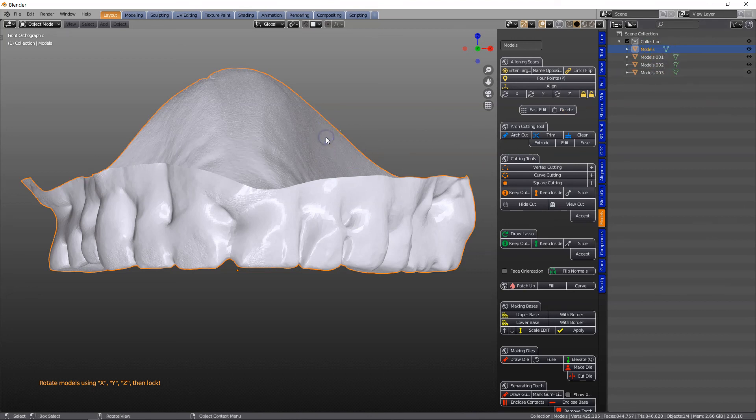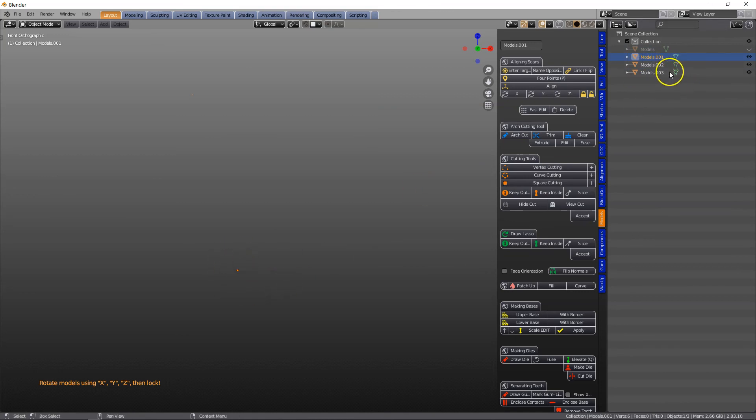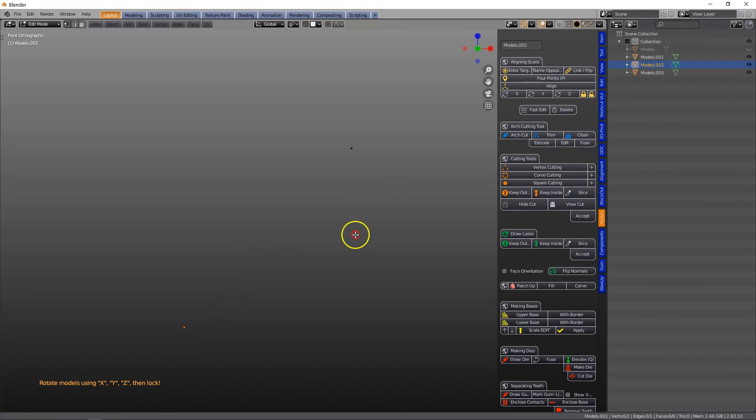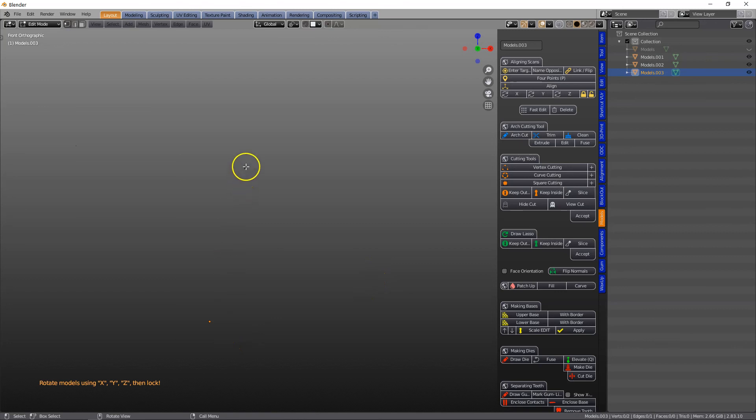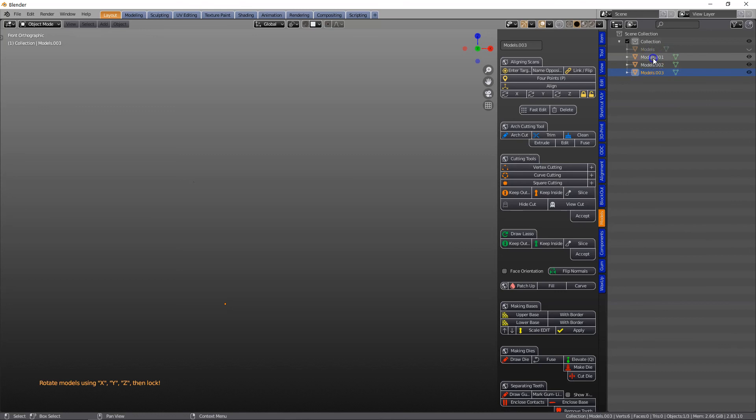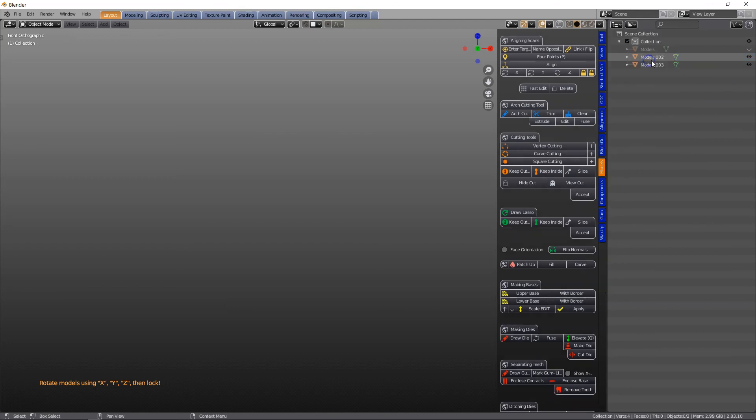So if I hide the scan, we've got a few vertices around the show. So in Edit Mode you can see here's a little piece, and then we've got another little piece somewhere else. There we've got another piece. So it's always important to make sure that you don't include these pieces, these vertices, inside of your model. So I'm going to delete these.